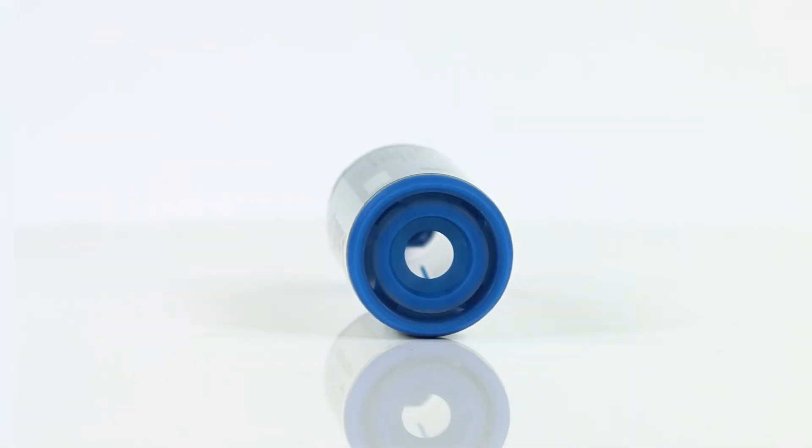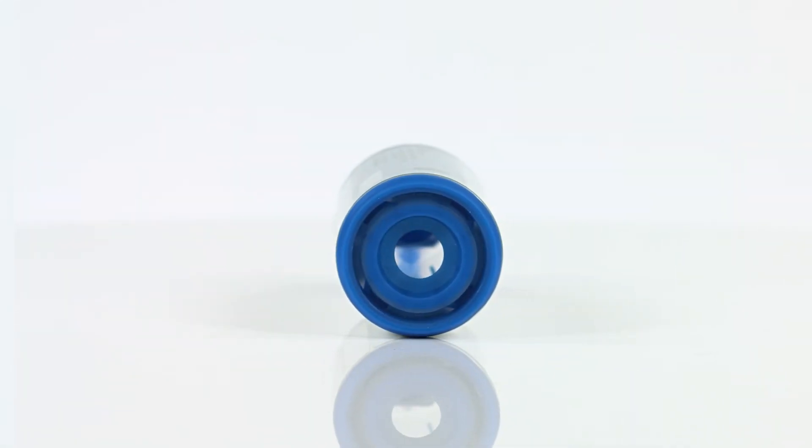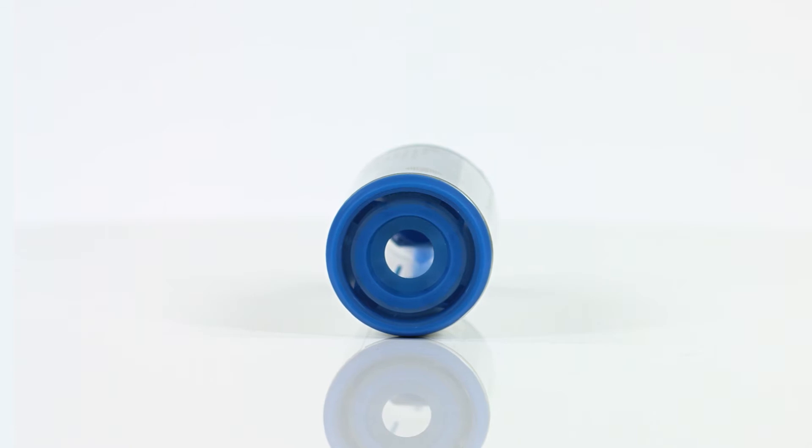At one end, you'll find an optimized MDI receptacle designed to better fit most commonly used inhalers.